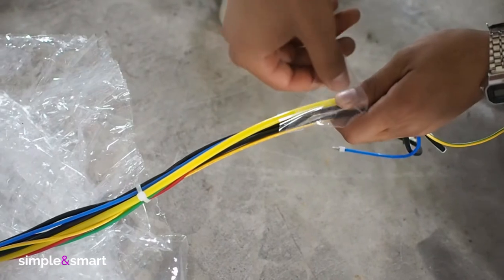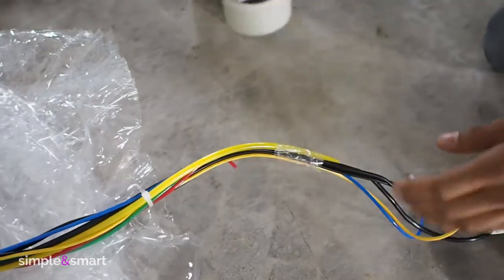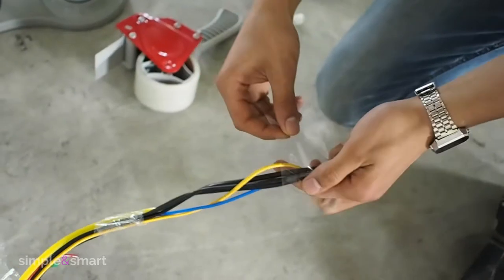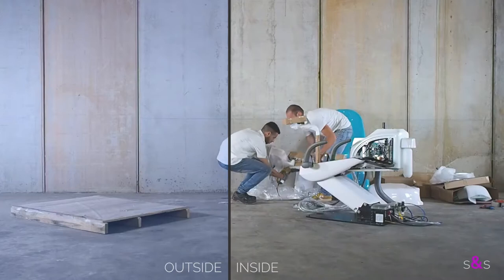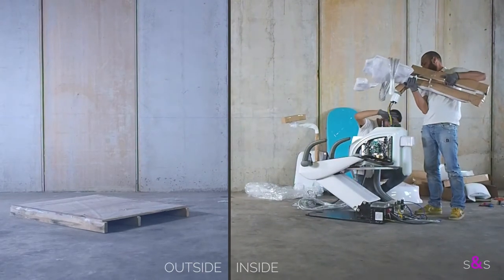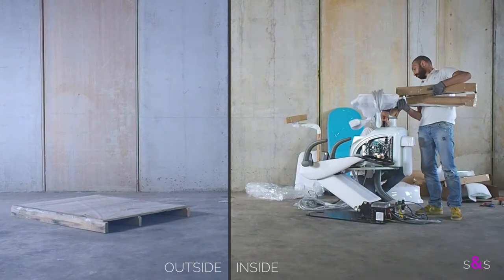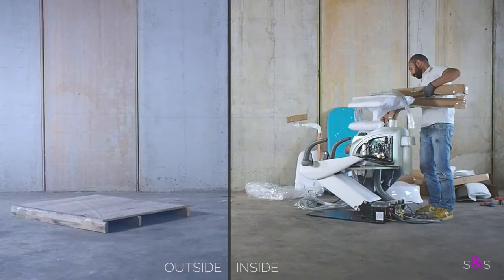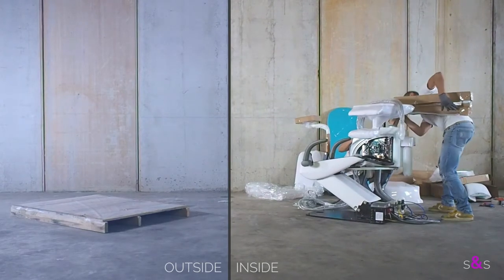Pack the tubes and wire of the instrument tray with some tape. Place the back of the instrument tray in its original position. Pay attention to connect the locking screw inside the water unit.